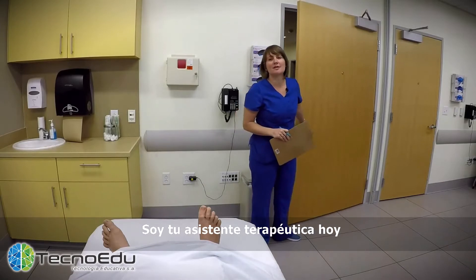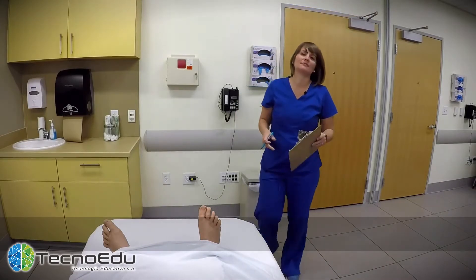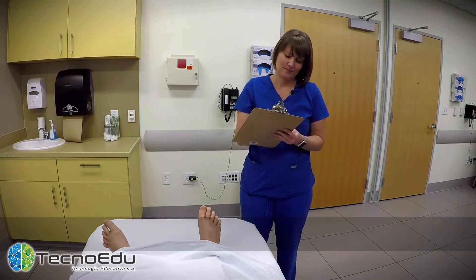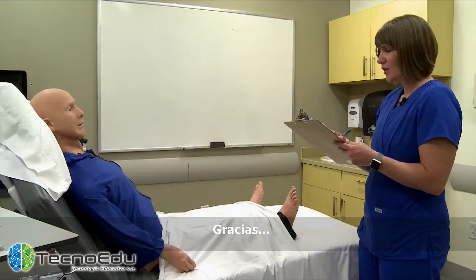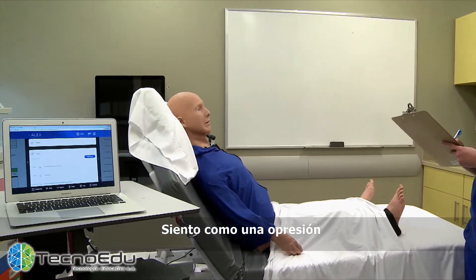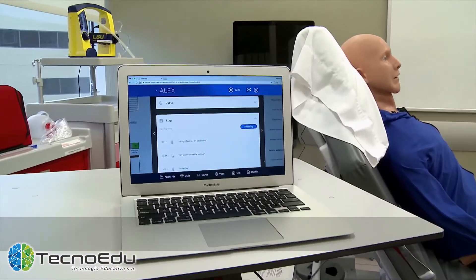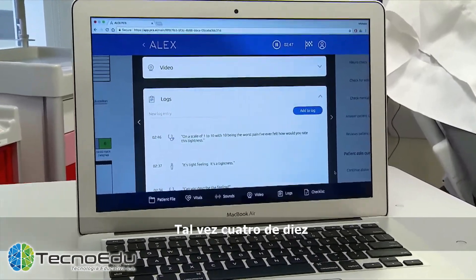Hi Alex, my name is Susan Lewis, I'm your healthcare provider today. What's going on? It's a little hard to breathe. I'm sorry to hear that. Can you describe the feeling? It's a tight feeling. On a scale of 1 to 10, with 10 being the worst pain you've ever felt, how would you rate this tightness? Maybe a 4 out of 10.